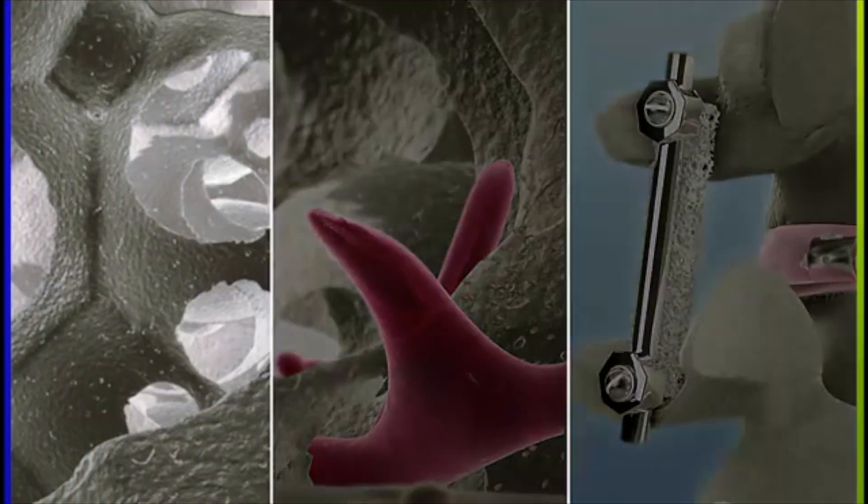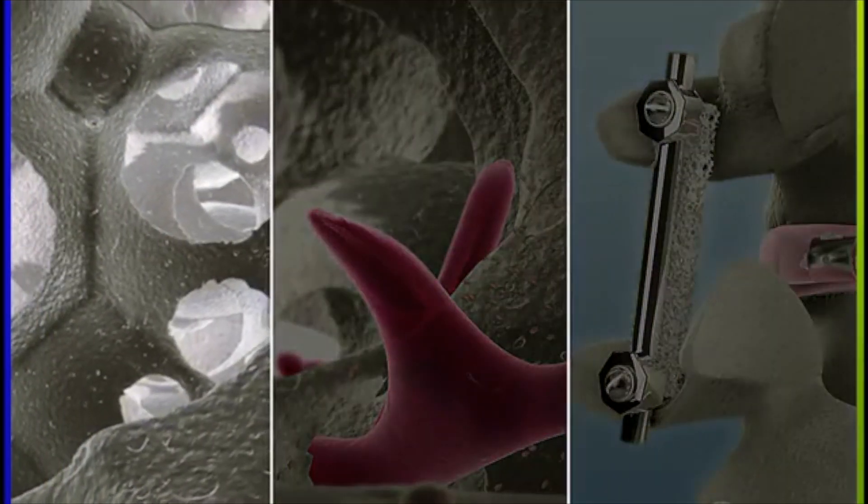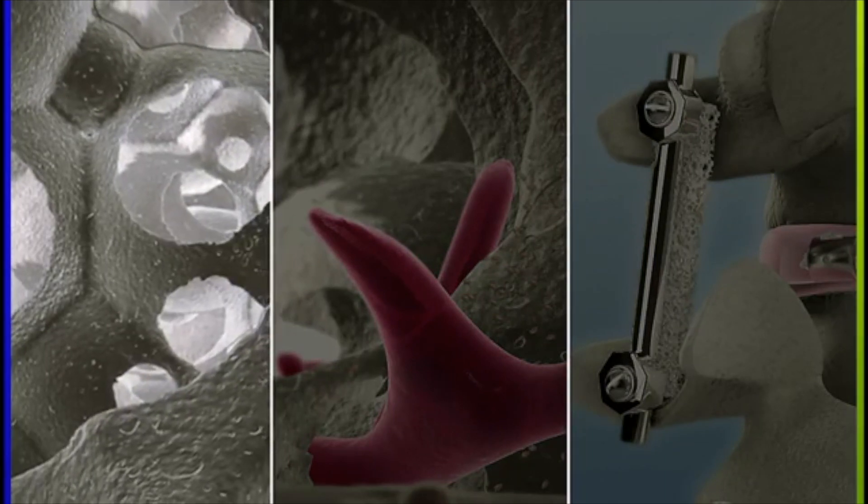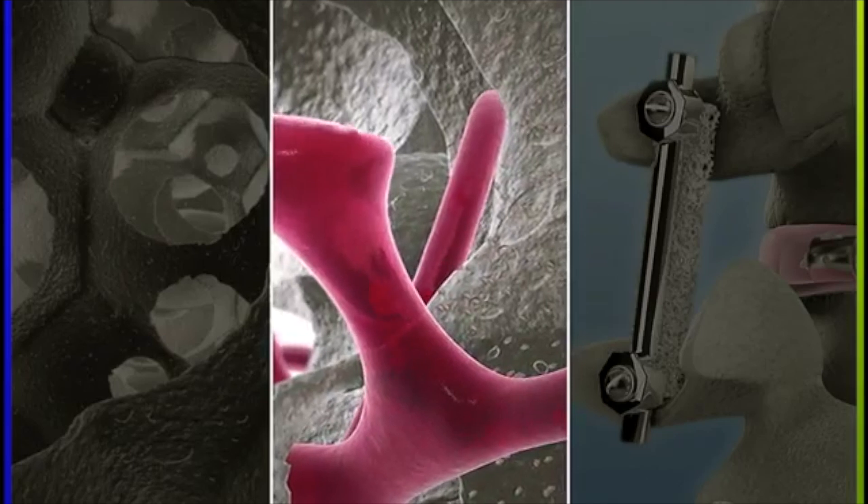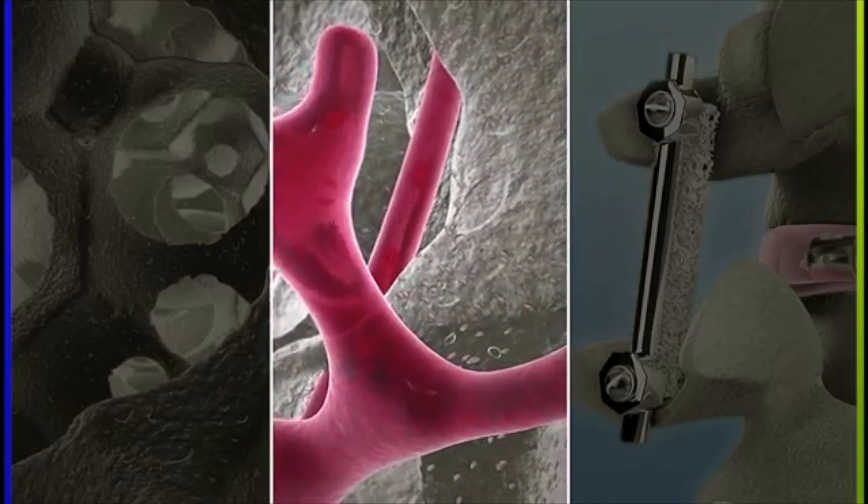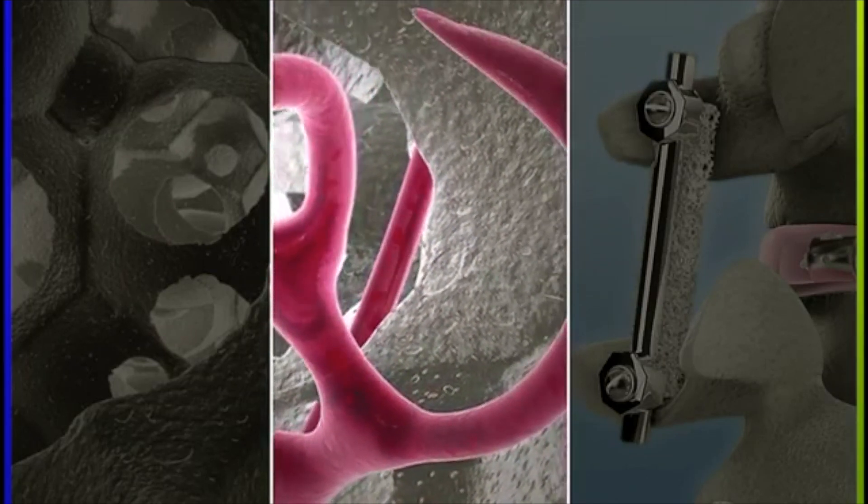Firstly, it provides a unique three-dimensional microcellular environment demonstrated to support osteoinduction. Secondly, it has been engineered to promote early neovascularization, which is essential for successful bone formation.